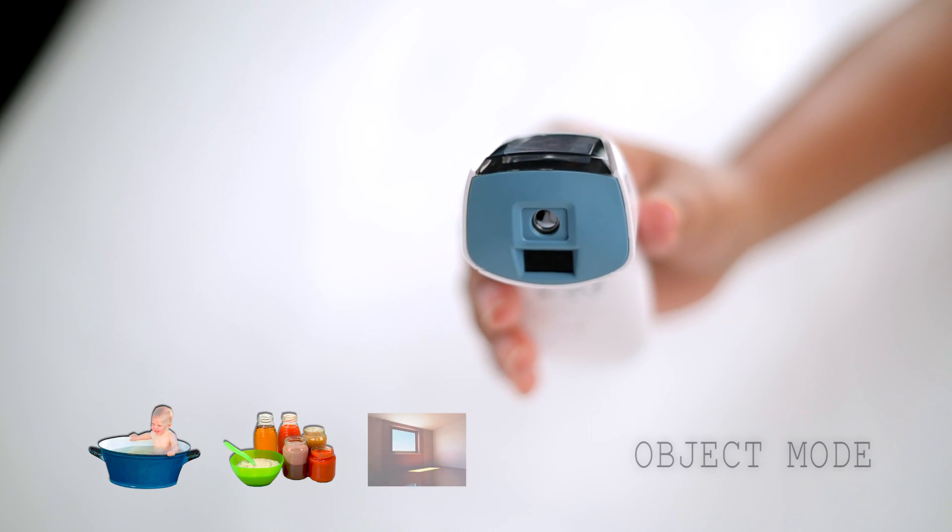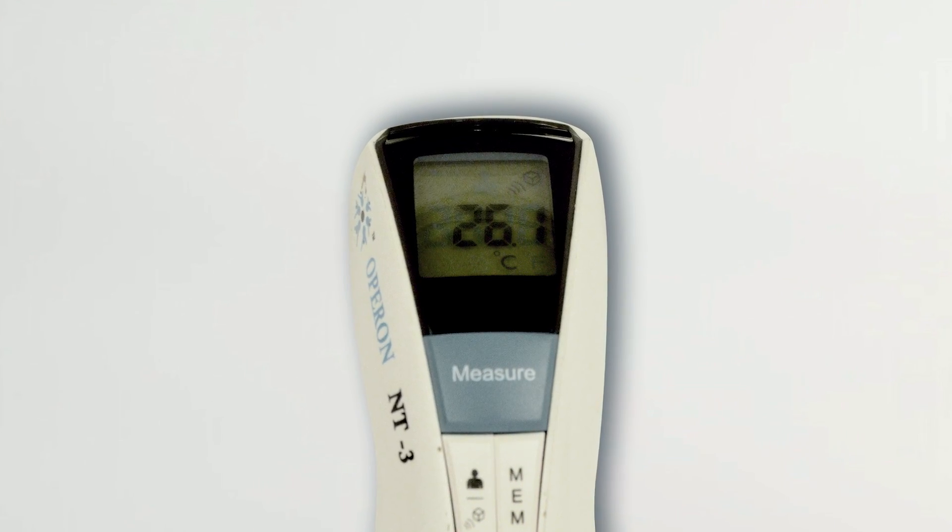Use object mode to measure food, hot milk, bath tub, etc. or just simply measure room temperature.